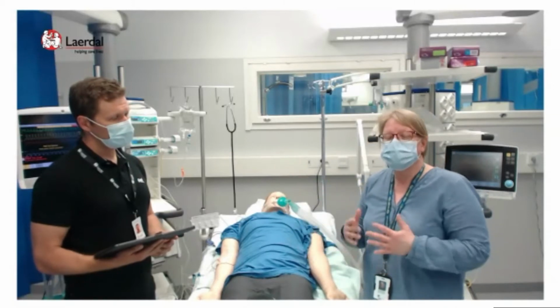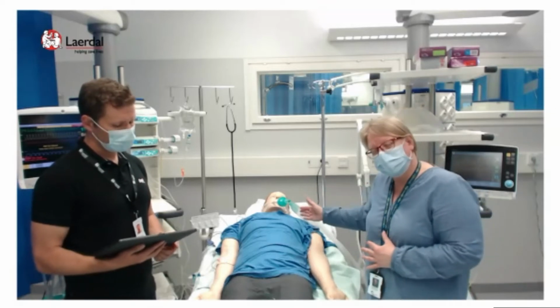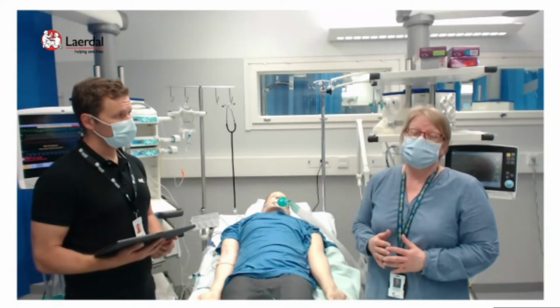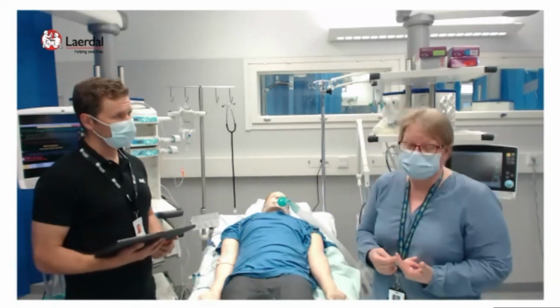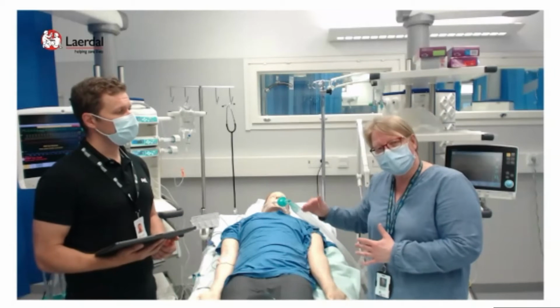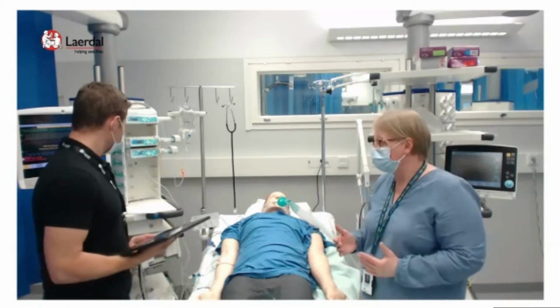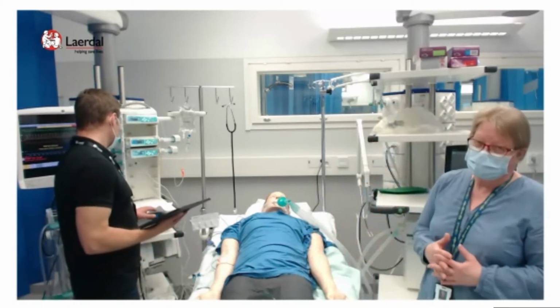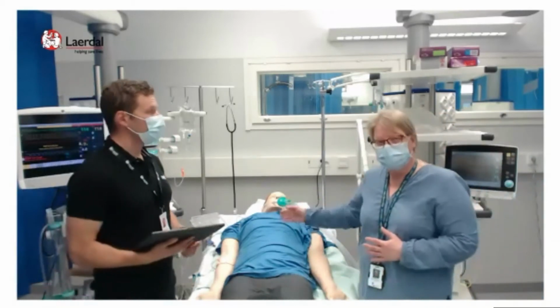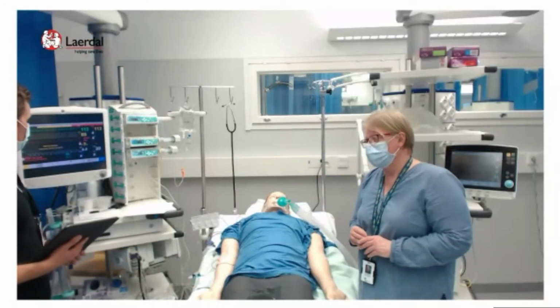Another thing is the tidal volume. But we need to remember that when we are treating respiratory distress patients, the recommended tidal volume is 6 to 8 milliliters per kilogram. So don't exceed that. But a small increase in tidal volume might recruit more lung for the delivery of oxygen to the patient. So we try to recruit the lung in the situation when the saturation falls down.